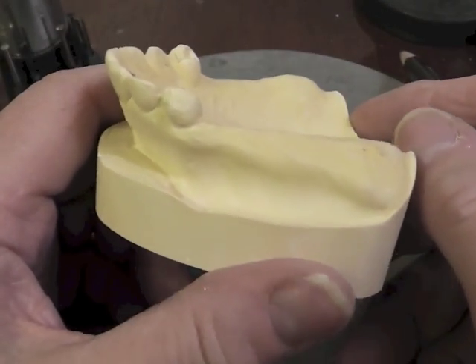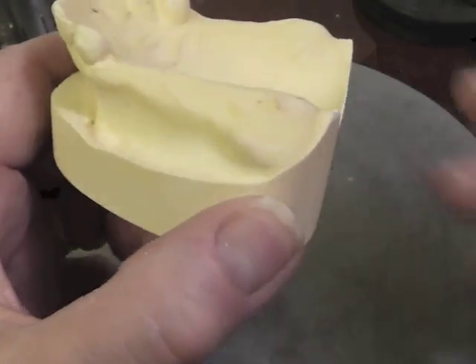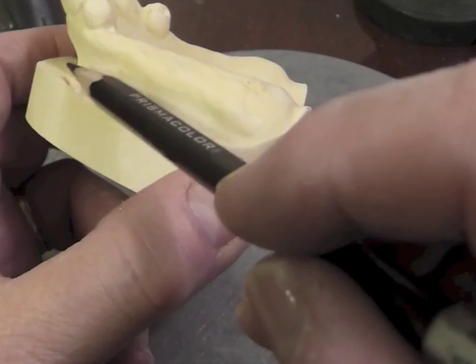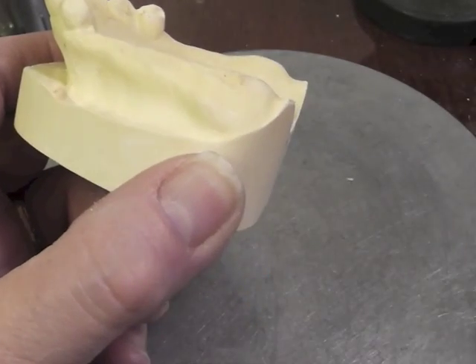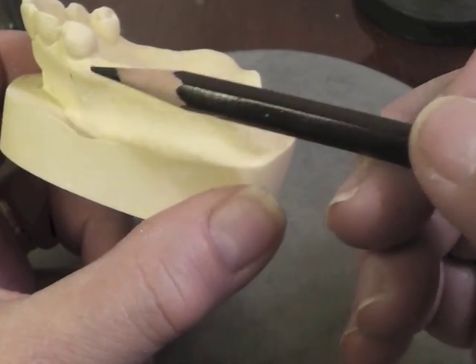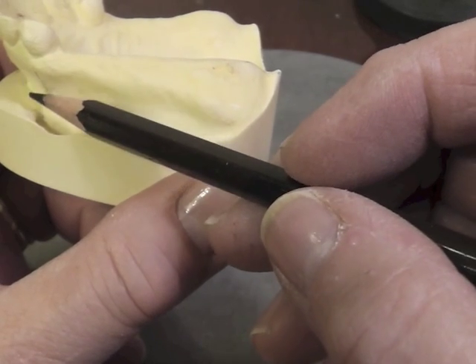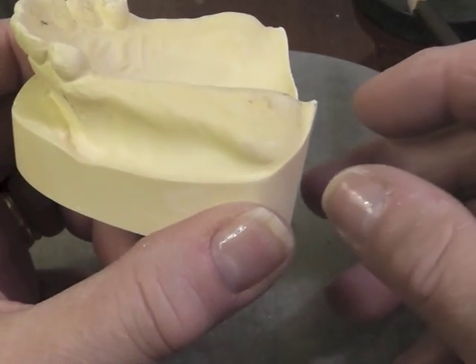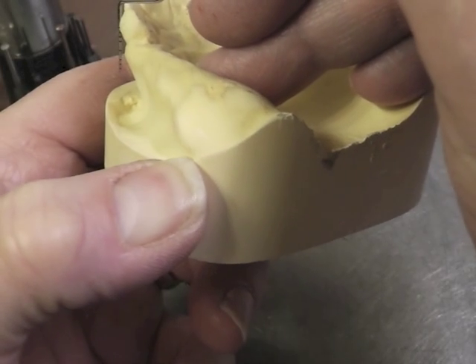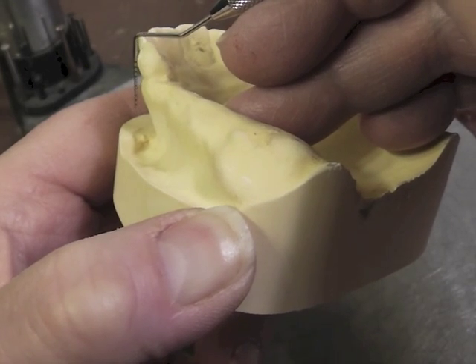On this particular side we have a canine and we have to decide what type of clasp we are going to use on it. Just looking at this tooth, it has an extremely bulbous surface on this side and a lot of undercut in this area. We won't be thinking of an I-bar on this tooth because the undercuts on canines are often severe, and that bar clasp would have to stick out so far away from our tissues that it will be very irritating to the mucosa of the cheek.